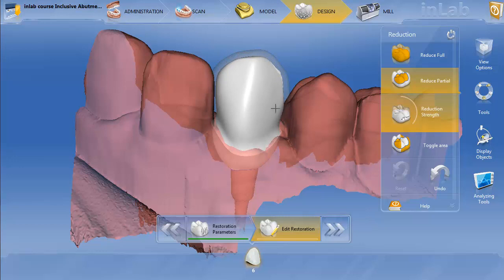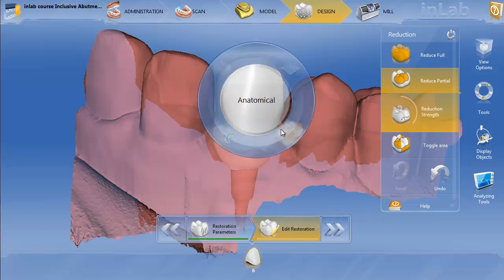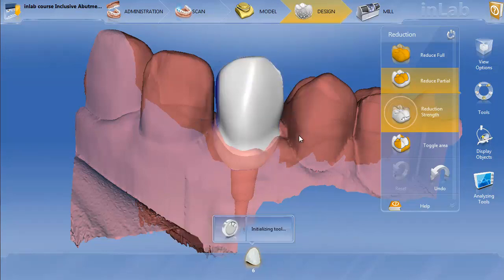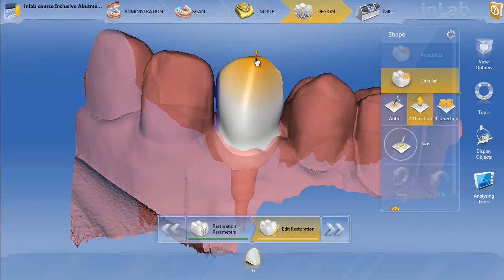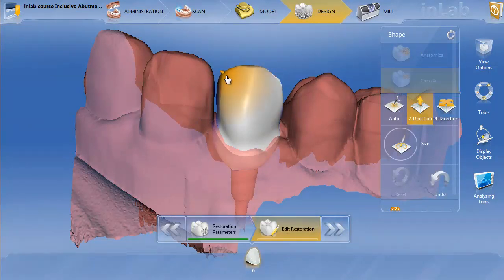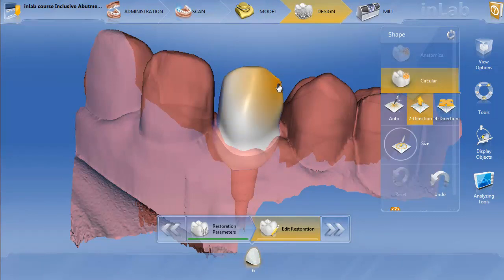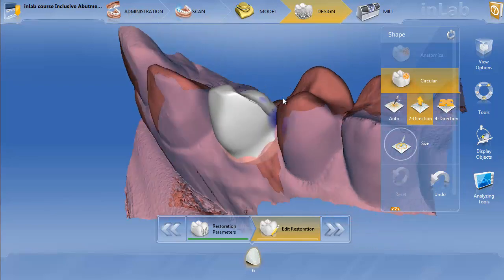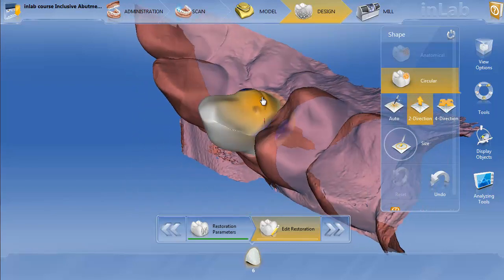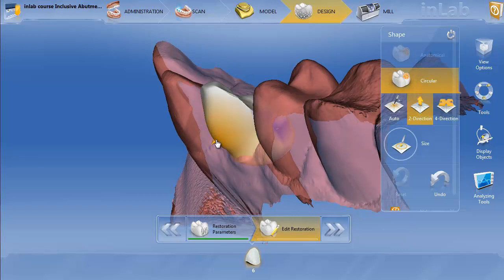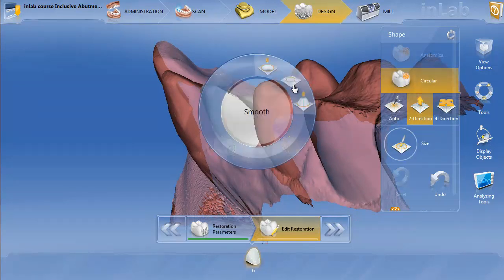Once you get the reduction, we're going to take our circular shape tool and start shaping it down. We're still a little sharp — we want to reduce it back here. We're going to want to get it in the front here to get rid of these undercuts. Then we'll take our smooth tool and just start smoothing it out.